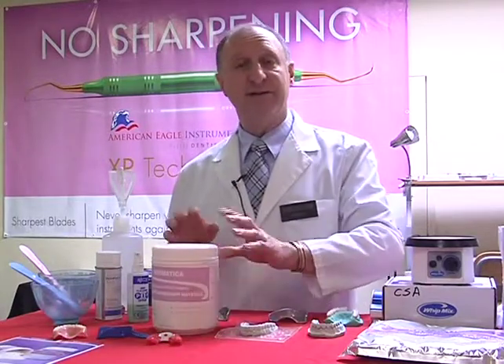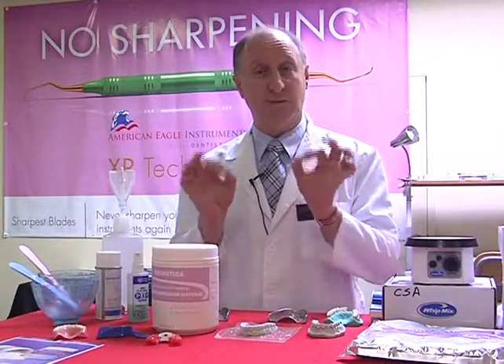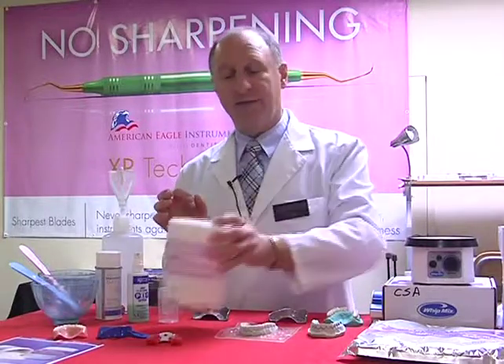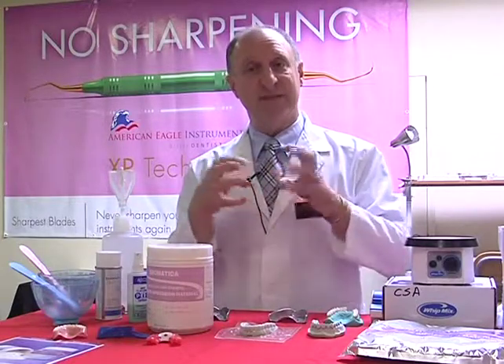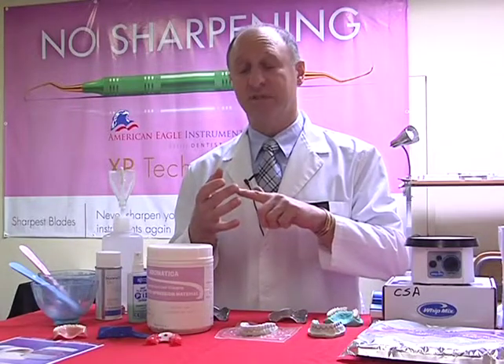When alginate is manufactured, it is made in 3 different particle sizes, which are all soft, round, and spherical shaped. If we shake the material up like this, those particles bang against each other and break, and they become like jigsaw puzzle pieces that don't fit together. We've just changed the working time, the setting time, the dimensional stability.